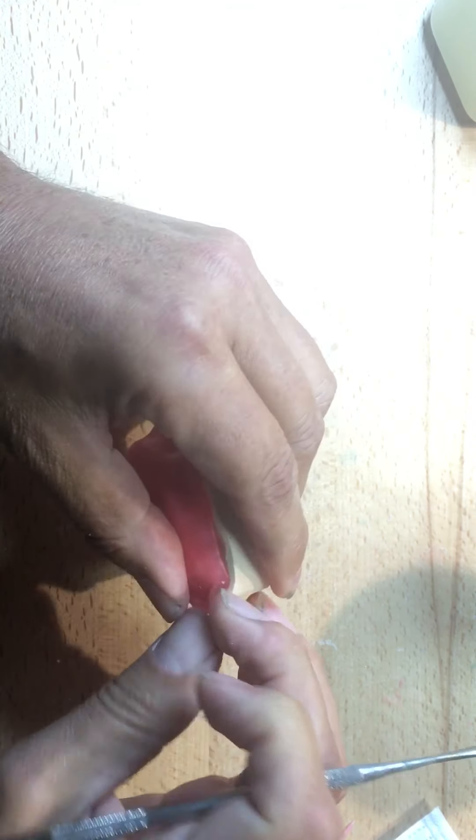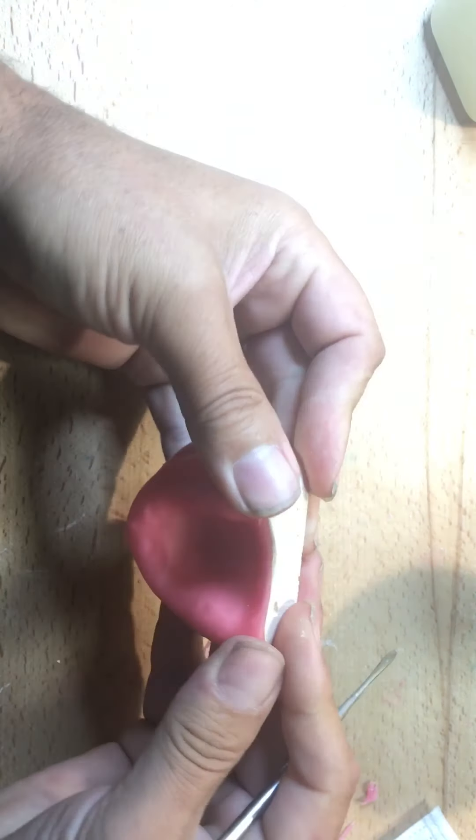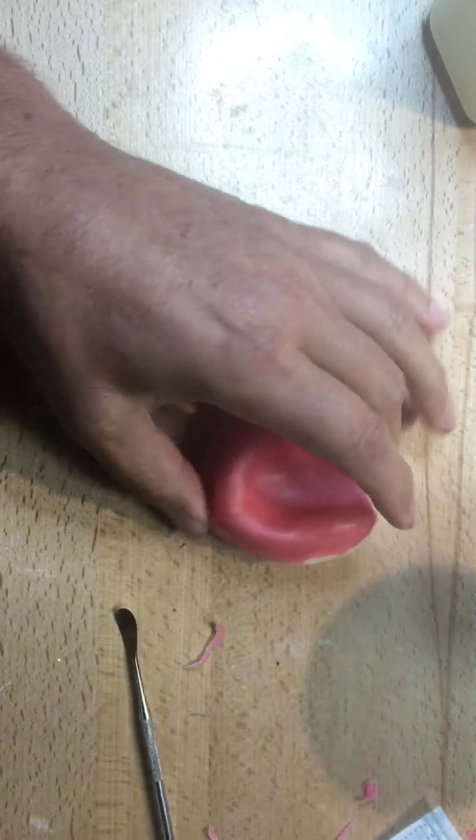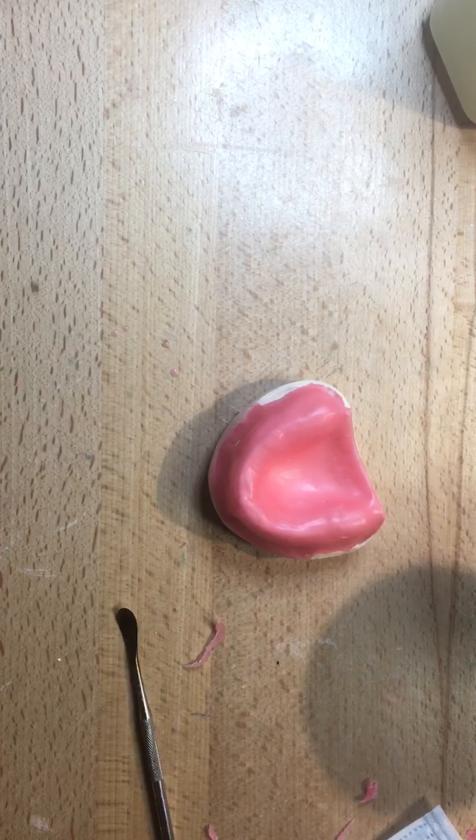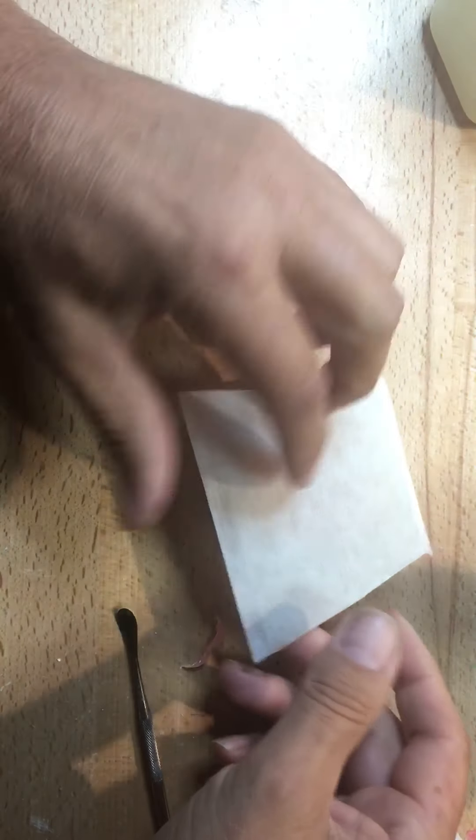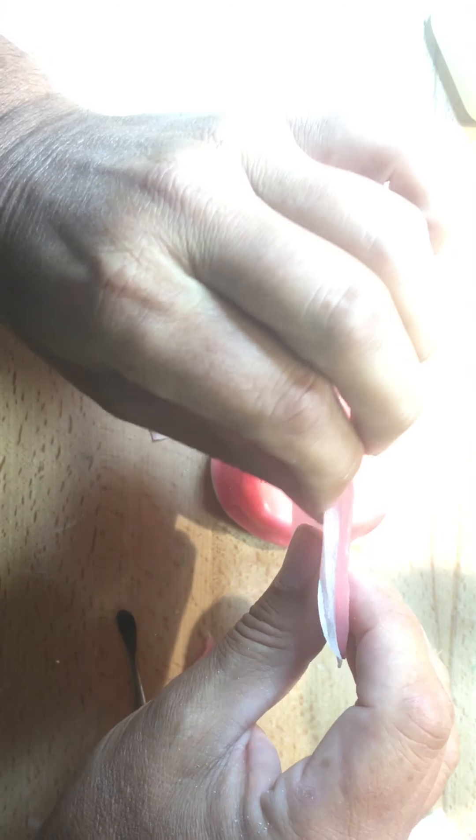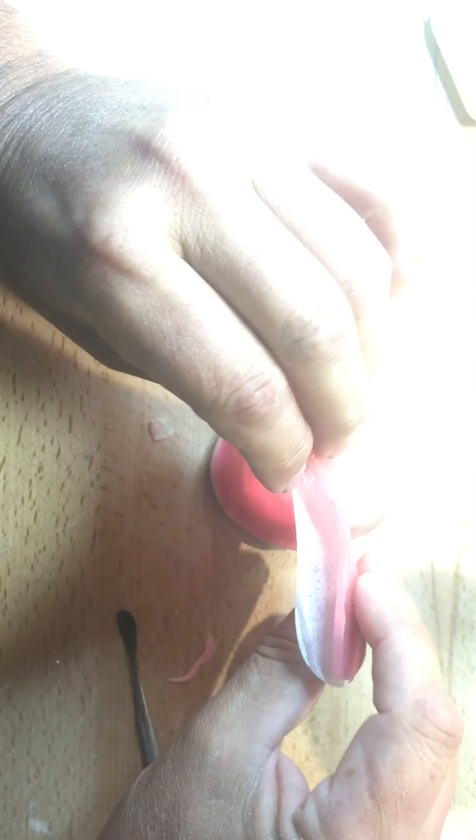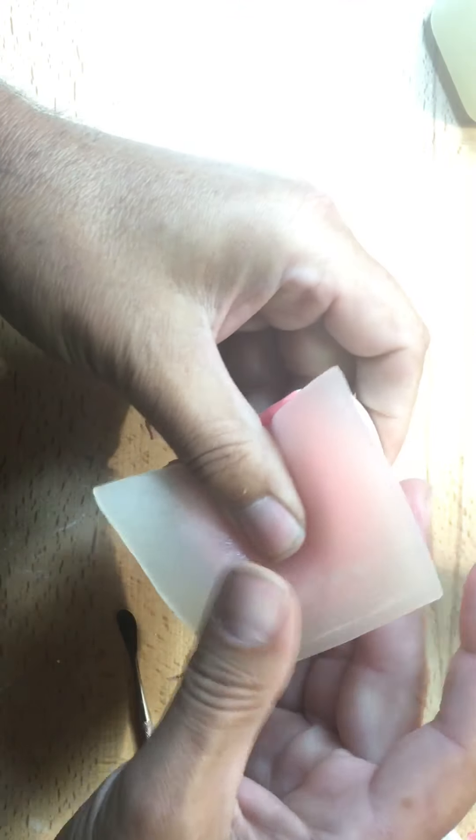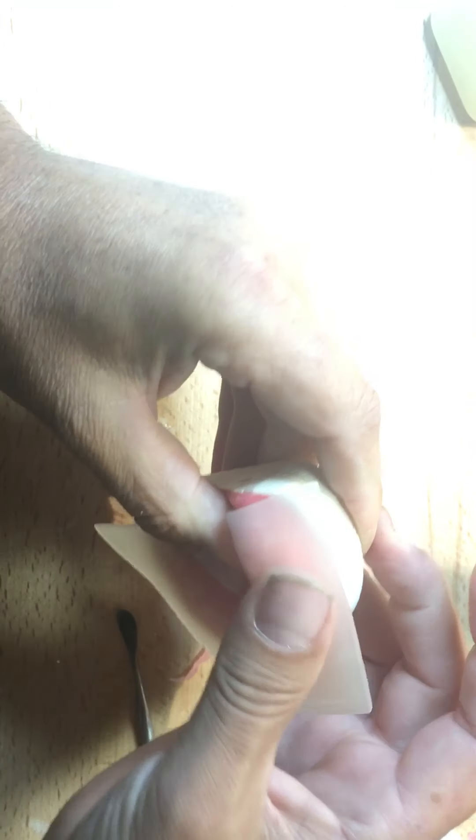So really this stage of the game here is that we have no undercuts. We don't want the tray to be undercut and bind on any tissue, whether that thickness is one millimeter, two or five. Now, many different manufacturers of the light cure tray. You could do a self-curing tray, but here we've got a Dentsply Triad, which I think of just last week, it's discontinued. And this is a clear one, but you can see the thickness of it here. And this would be more the one that we're traditionally using in the school. And we can use it for a custom tray and or base plate, but it's a little bit thinner. Regardless of the thickness, you could always double those sheets up if you wanted it thicker. Regardless of the thickness, the principles are the same.